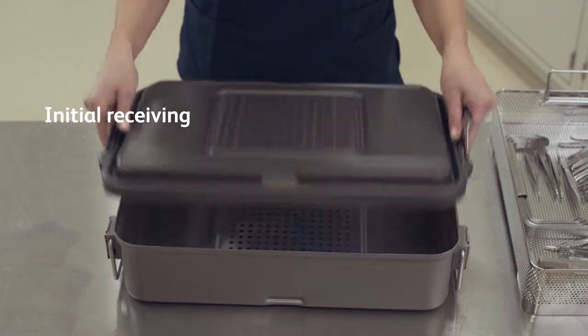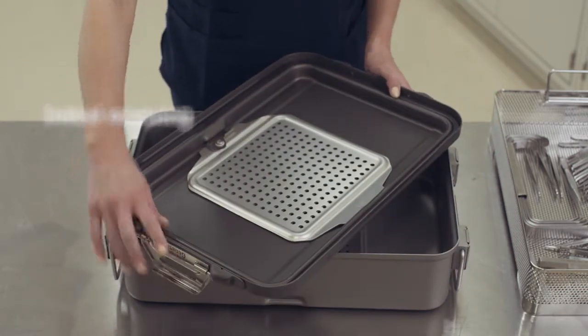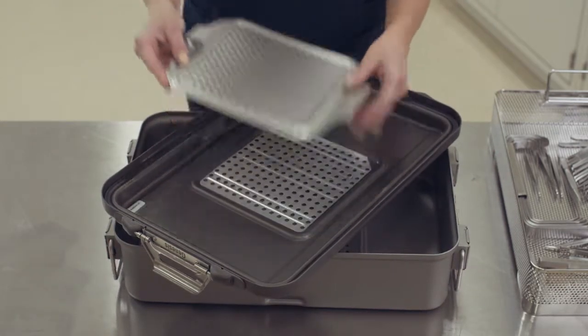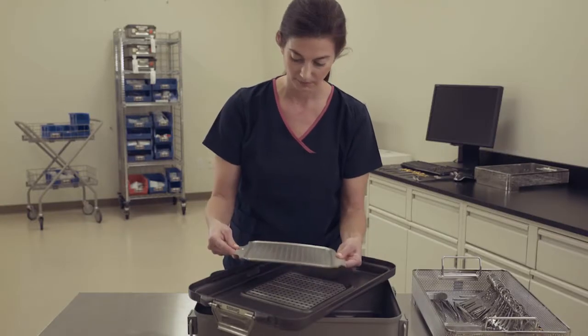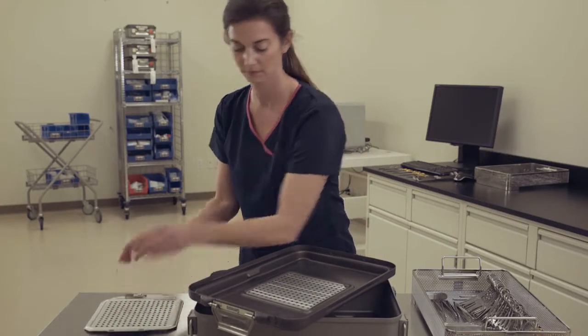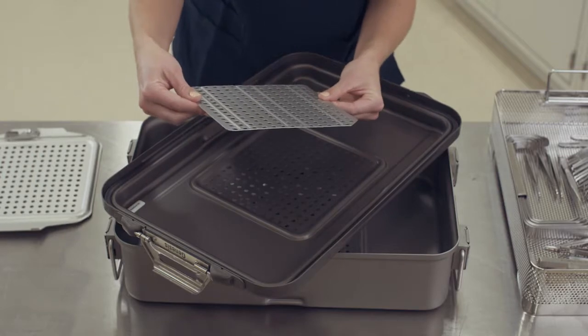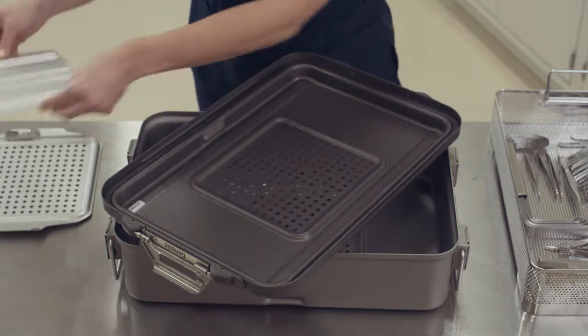It is important to inspect and thoroughly clean and rinse all components, including the container, basket and accessories before using them. Not properly preparing your Genesis containers may adversely affect the container's finish.